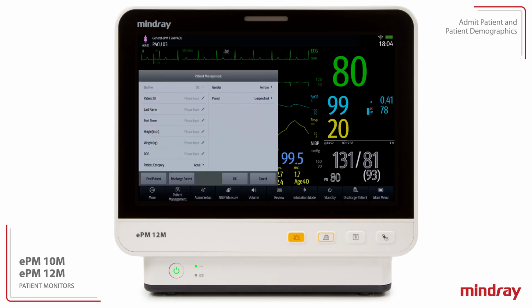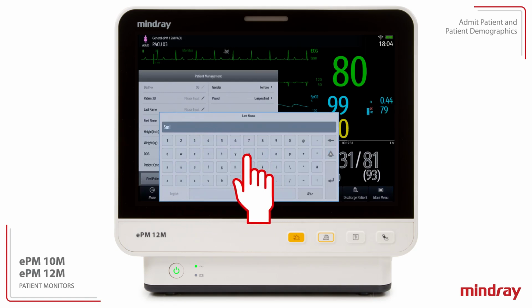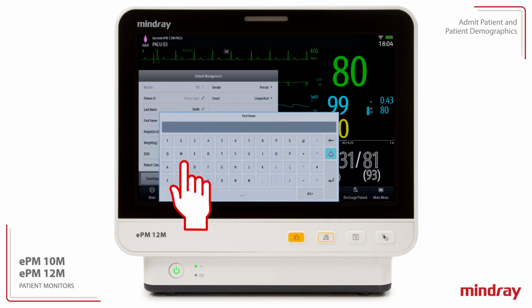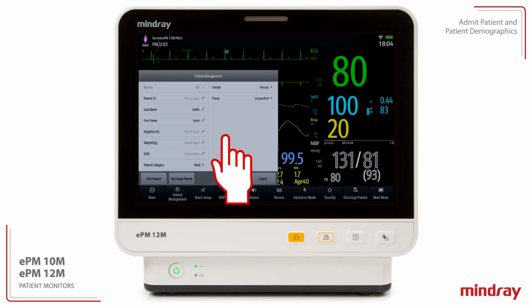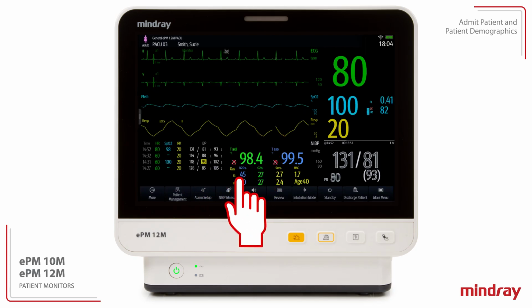The Patient Management dialog allows the clinician to enter patient demographic information using the on-screen keyboard. Change patient category, and specify paced status. Select OK to confirm the information and return to the main screen.